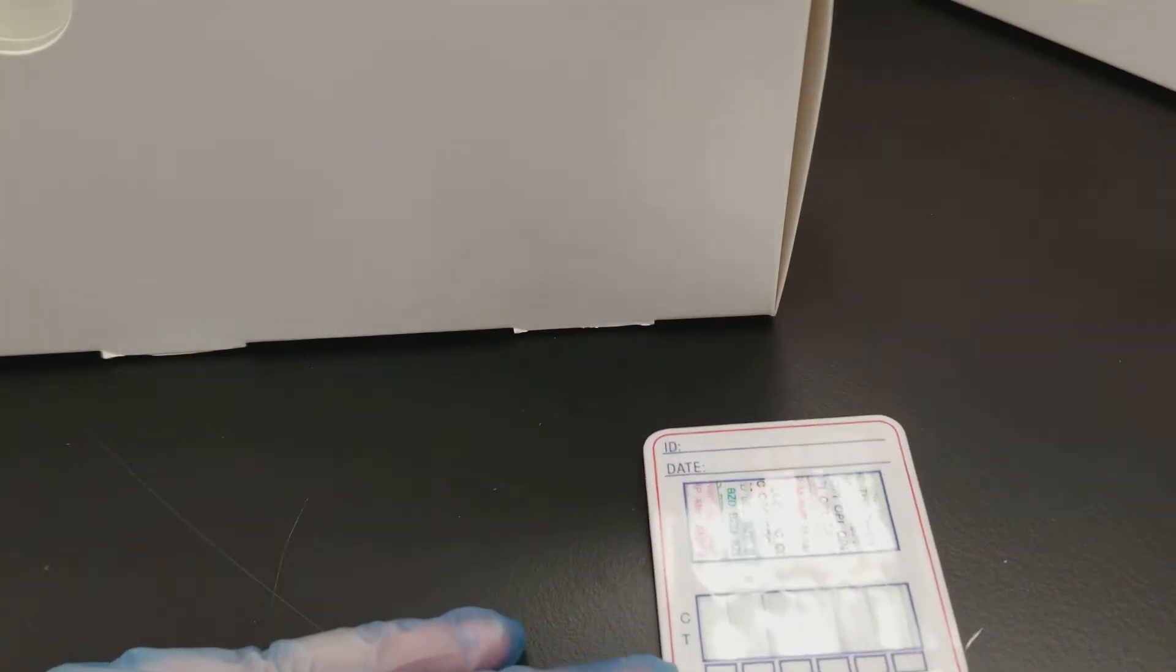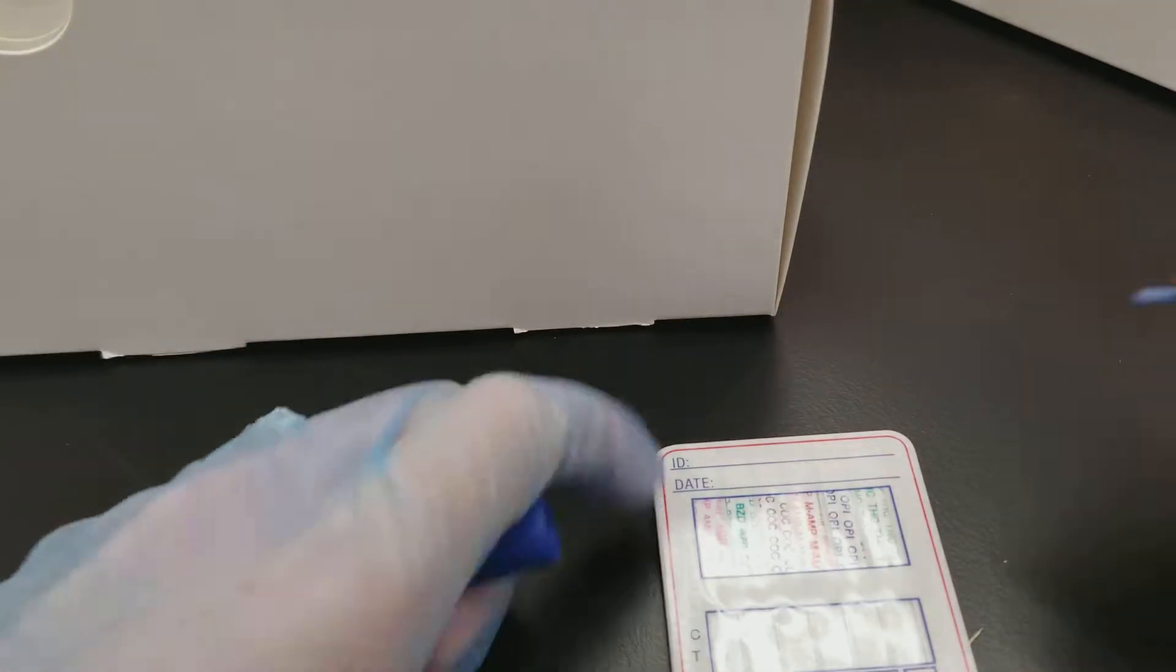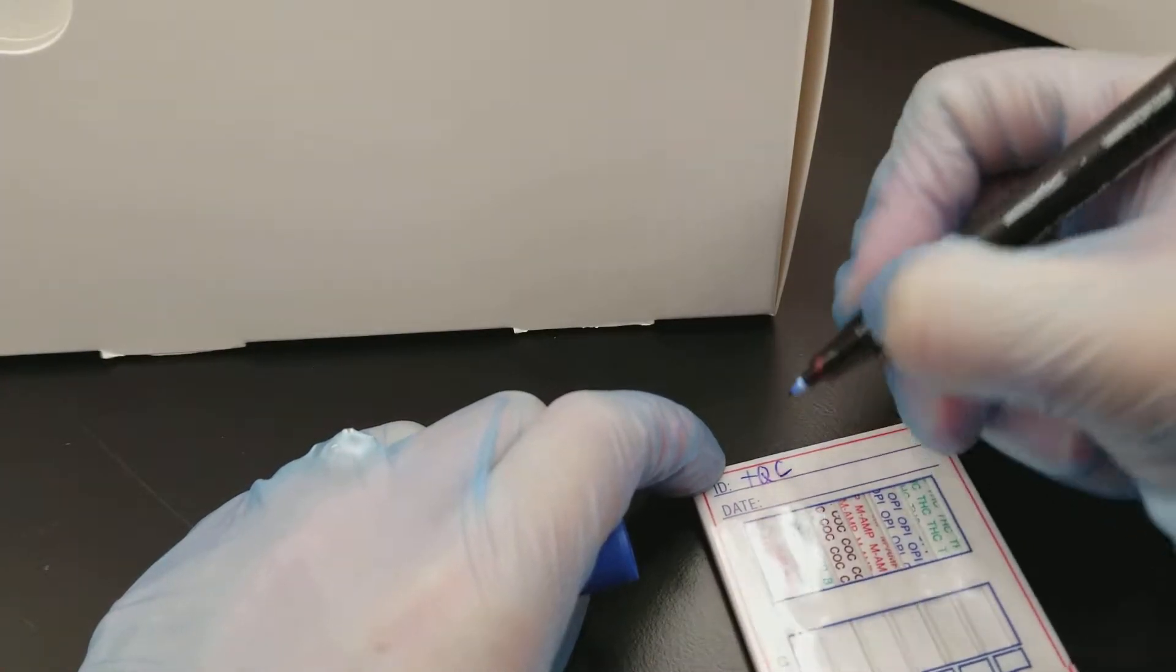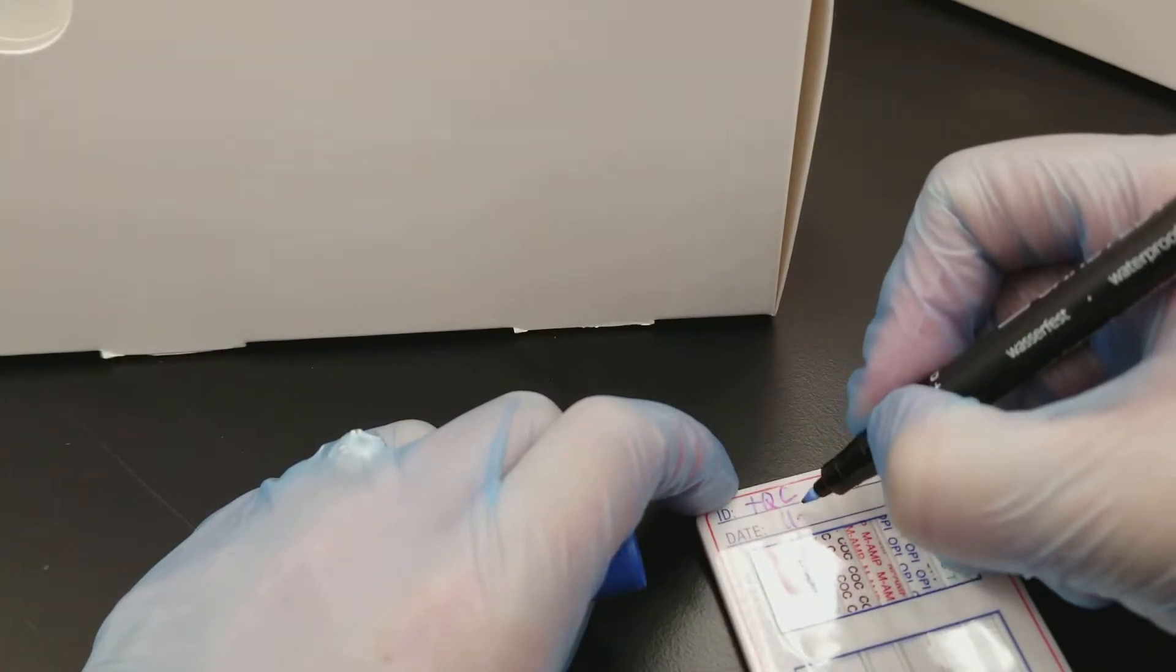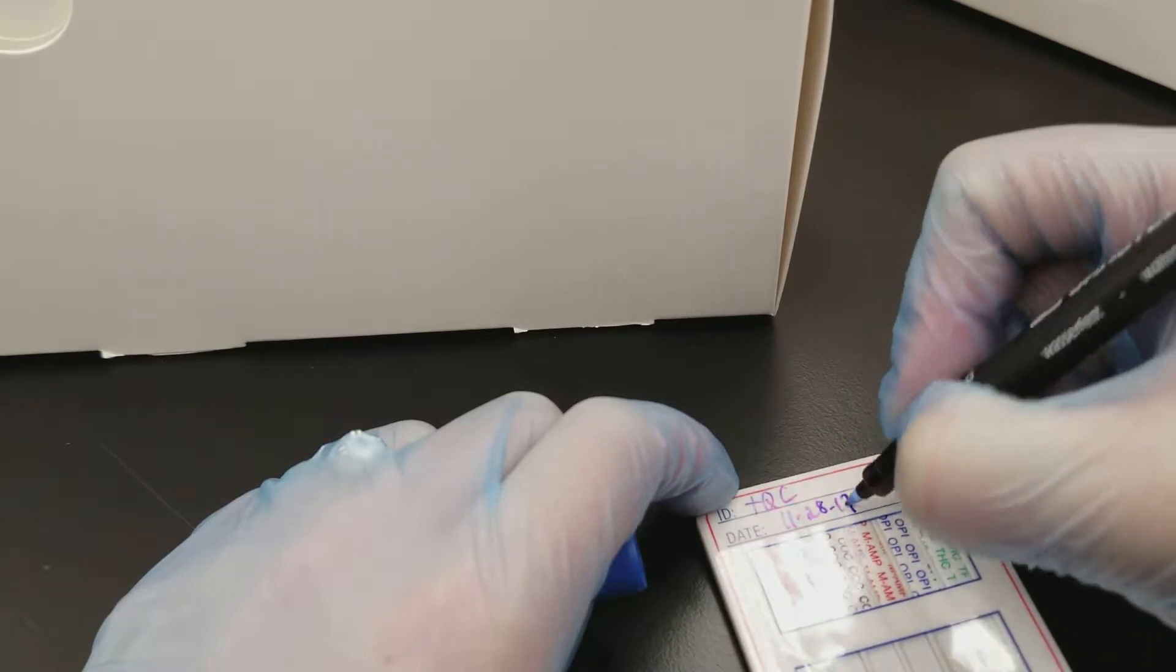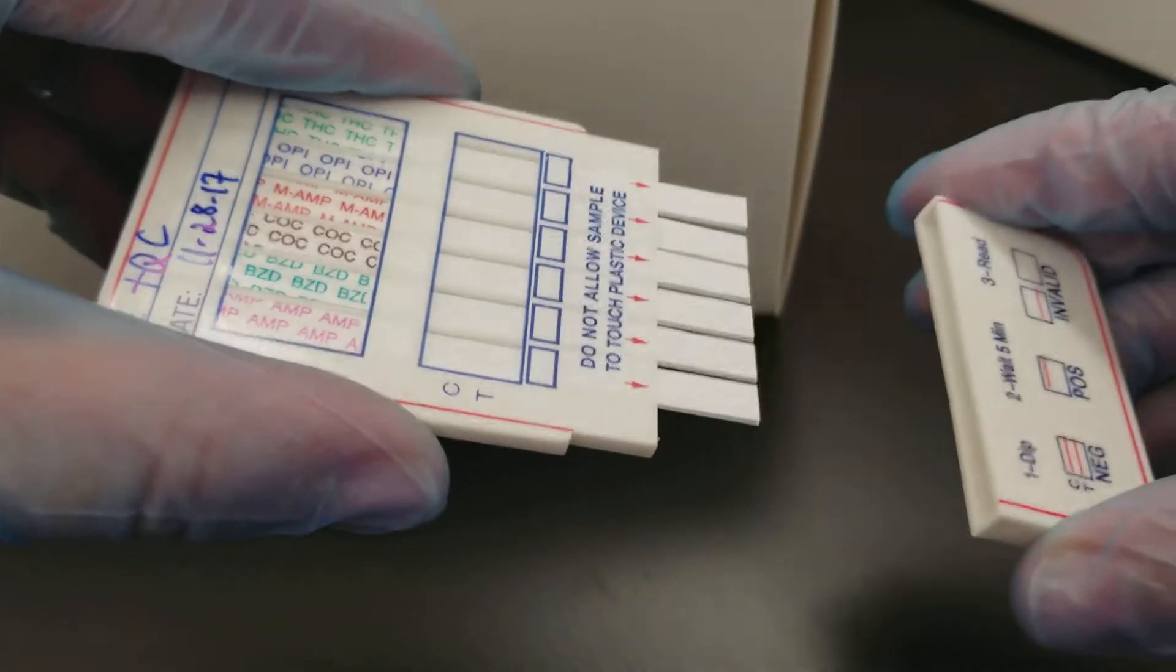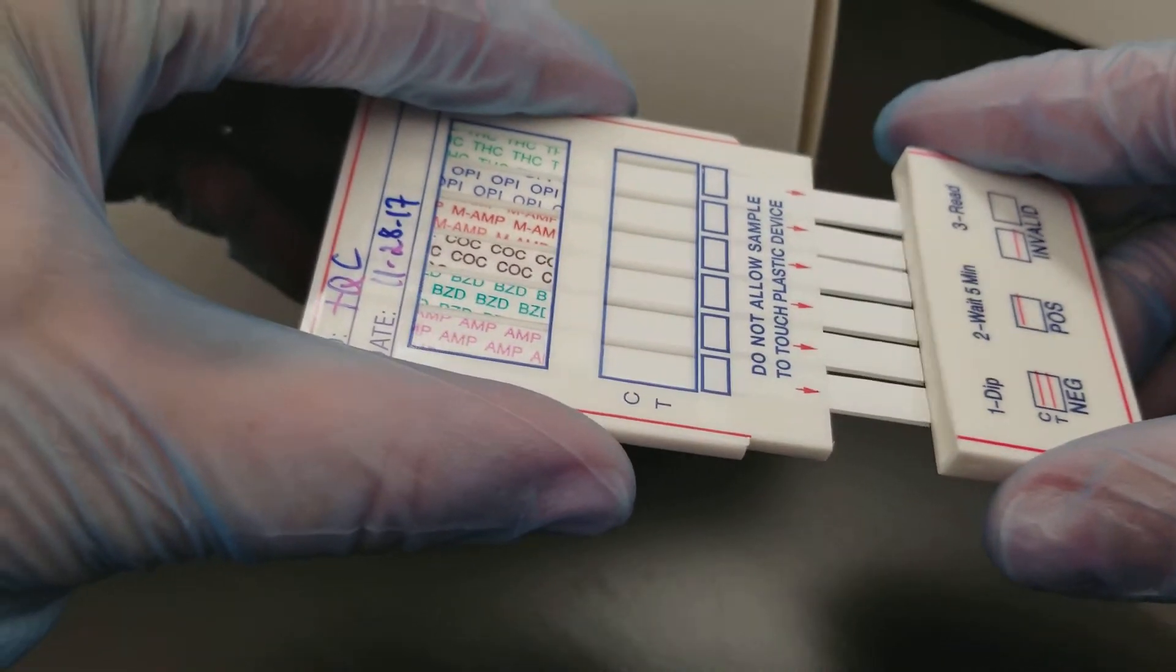I'm going to write what I am doing, so I'm doing the positive QC. The date is today. This card is extremely cool because it has a cover for the little strips down there.